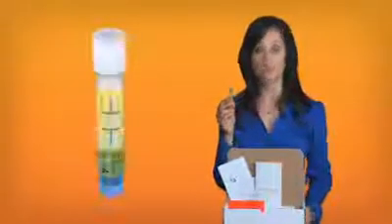After you've successfully collected your urine sample, next you're going to want to take out the transport tube. Don't discard the clear liquid inside the tube — it's needed for the testing process. Place your collection cup on a flat surface, and using your pipette dropper, draw the urine from the collection cup and drop it into the transport tube. Fill the transport tube so that the urine is between the black fill lines. This is very important — be sure not to under or over fill it. Screw the cap on tightly and discard the collection cup and excess urine in a safe and sanitary manner.